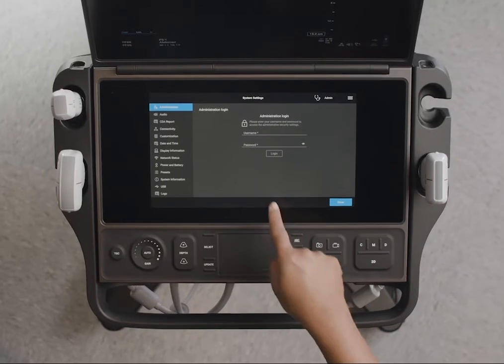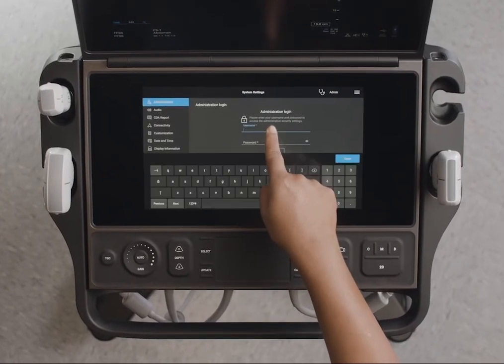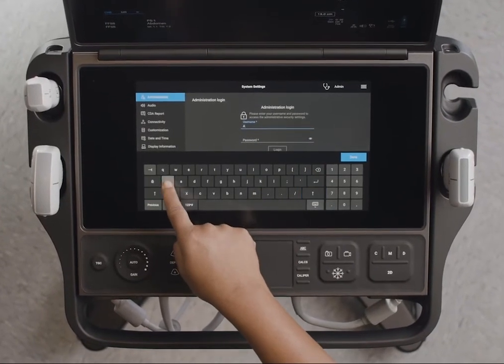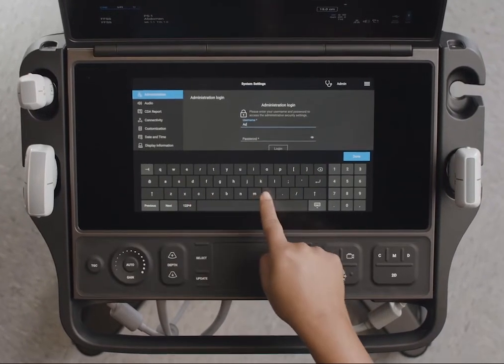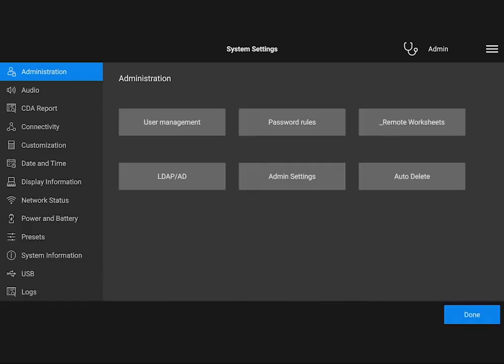To add new users and update their information, you'll need administrator access with the proper login information. With this access, you can also require users to log in to the system with a password to protect patient information.